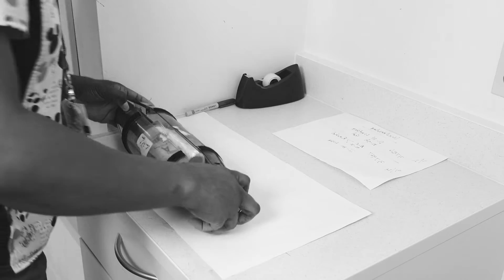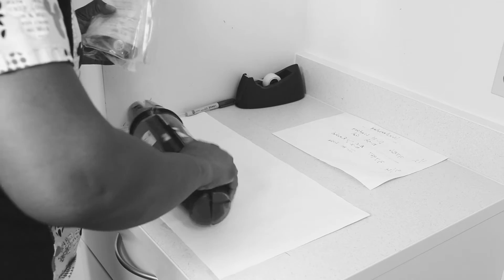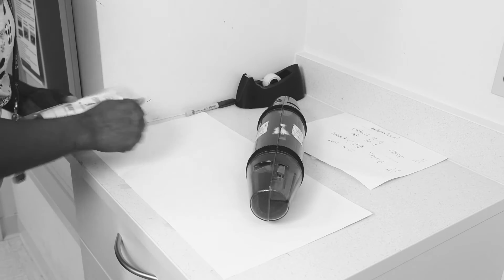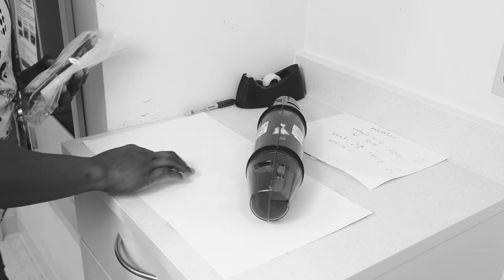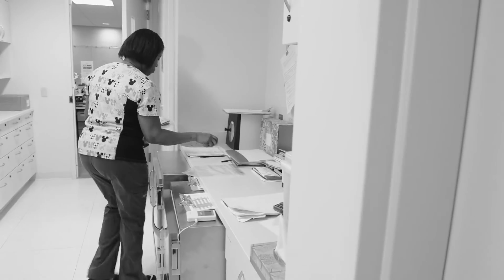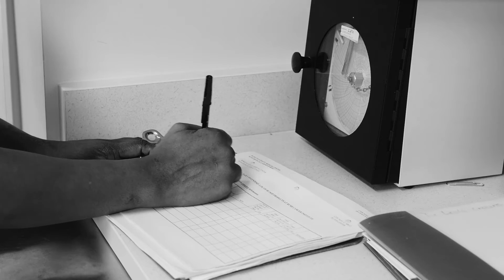We run over a hundred typing screens every day. We have to provide them with blood that is compatible and antibody-free. We have to maintain the safety and quality of the blood before it leaves here according to standards.